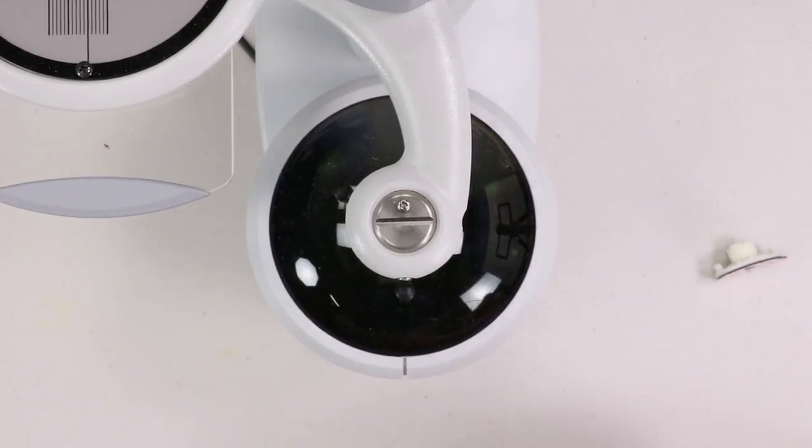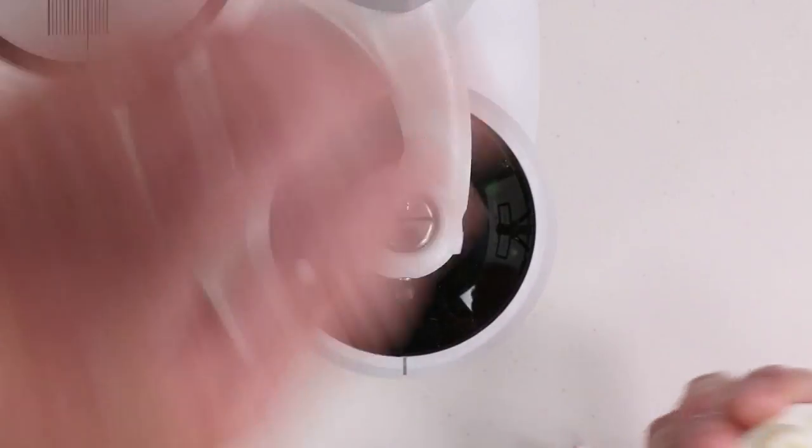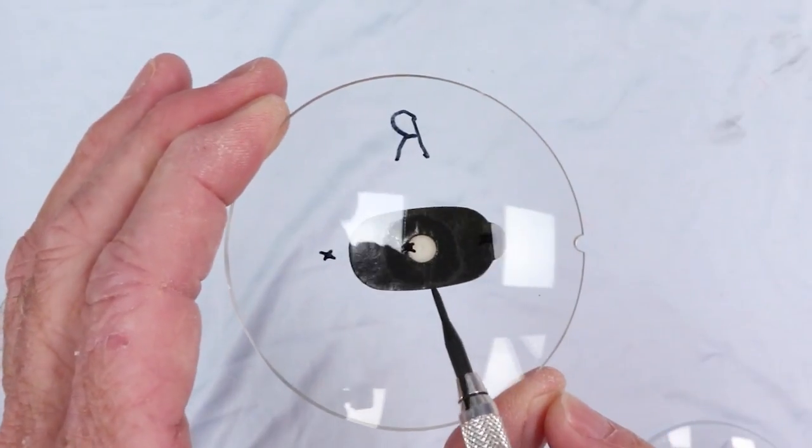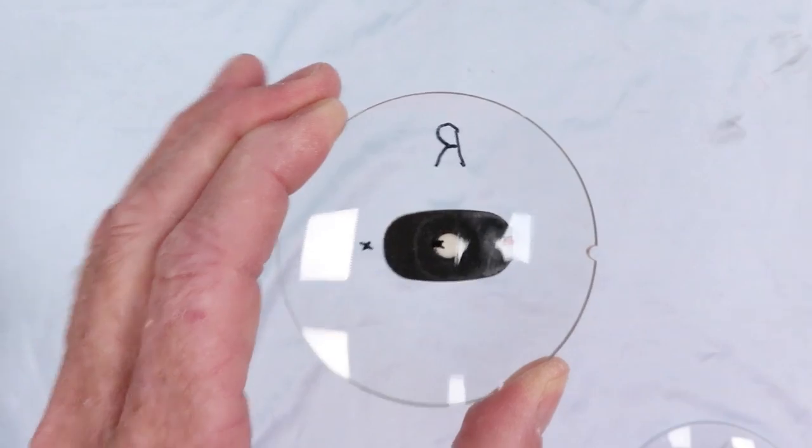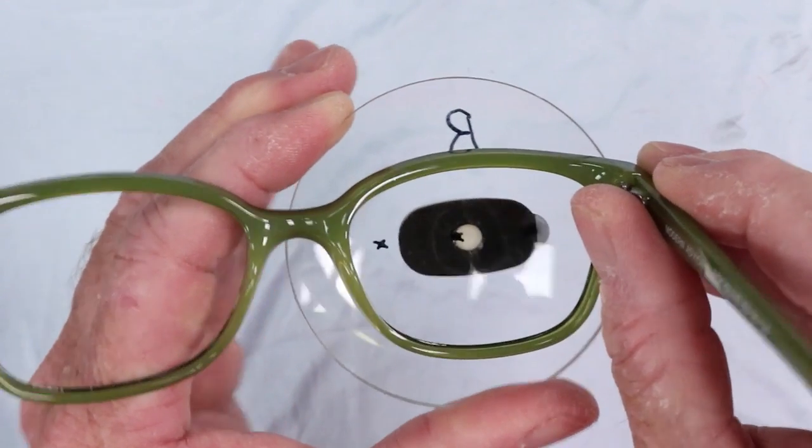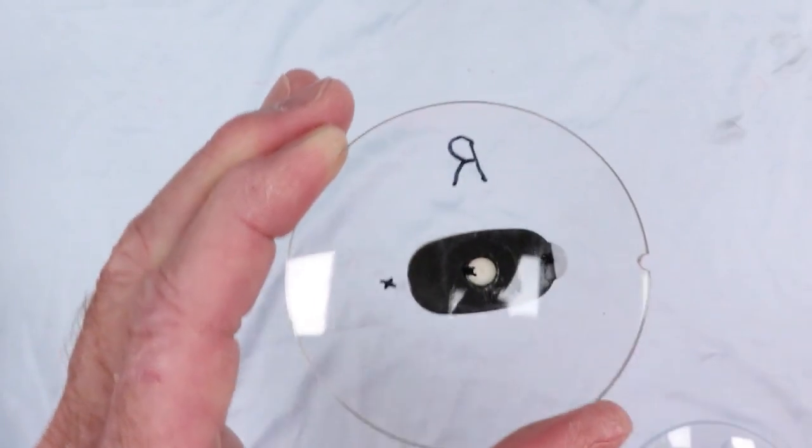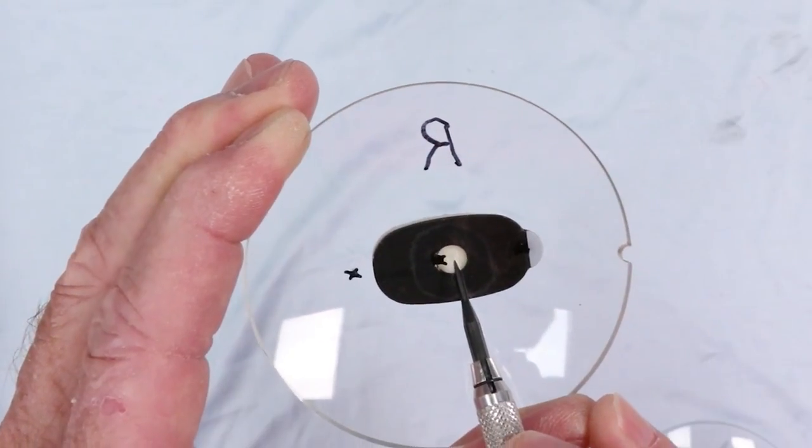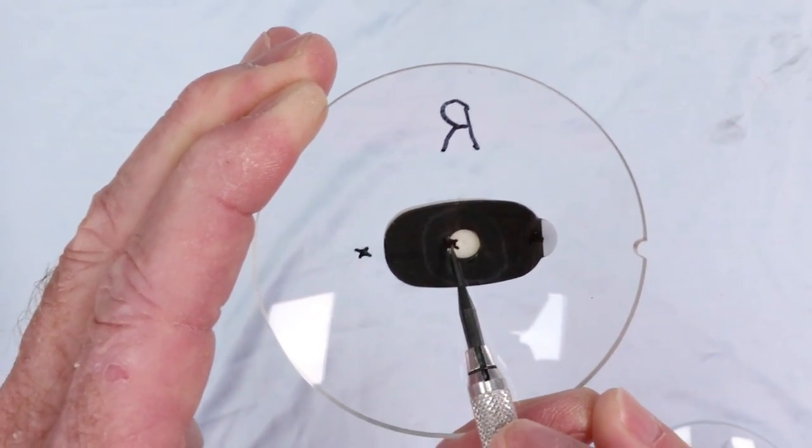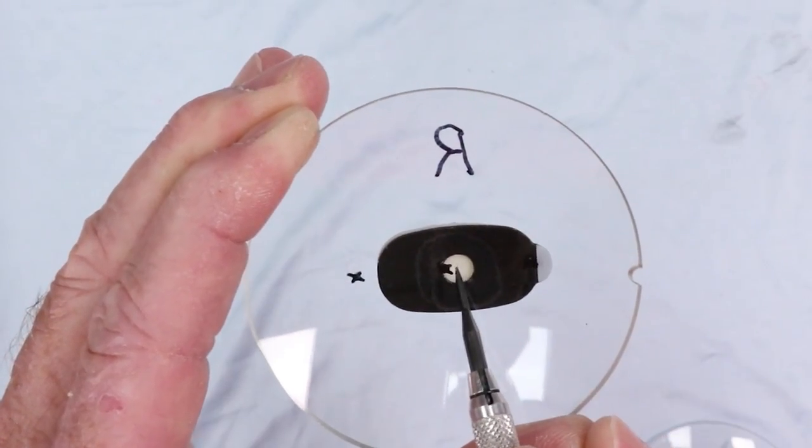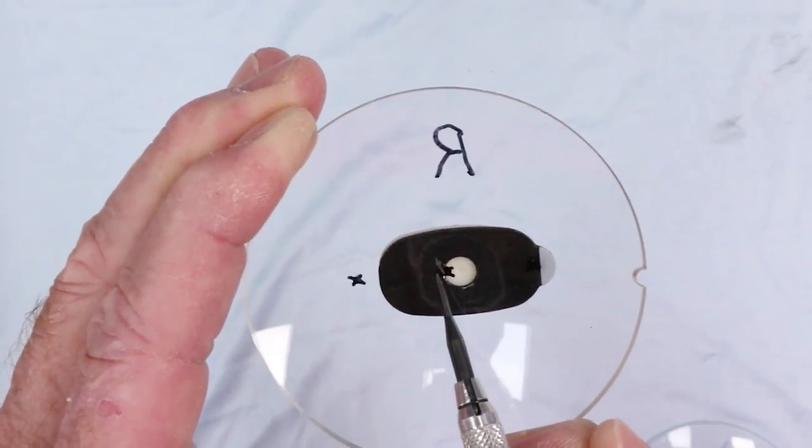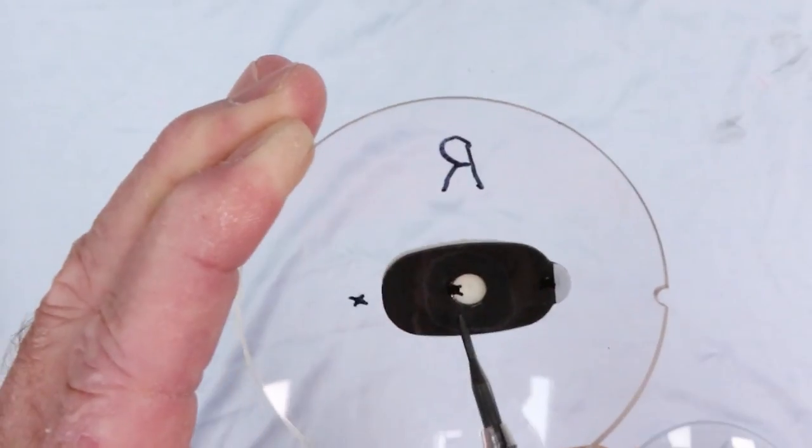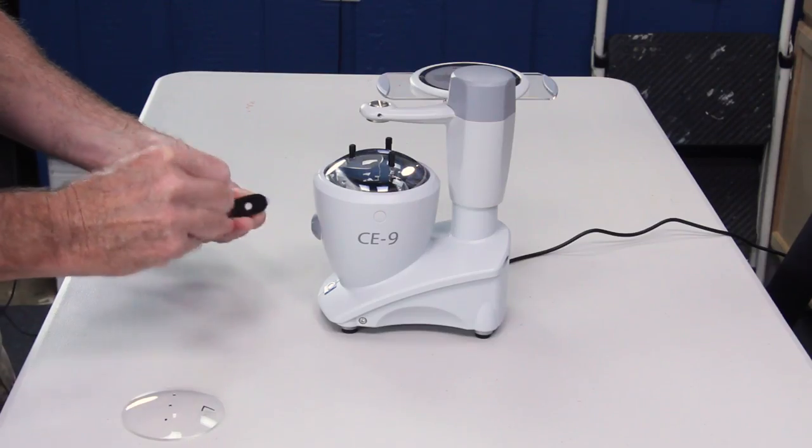Checking it. Let me see if I can do this a different way. Again, this is kind of more of a check your work kind of thing. But if you take a look at this lens, right lens, looking through it as if you were wearing it in a pair of glasses, like so, the center of the block, that little tiny dot there, that would be the center of the eye wire opening. And if I look, I can see that my OC, my black dot or X right there, has been displaced two and a half millimeters to the left or in decentration. So that's just kind of like I say, just kind of a check your work step.